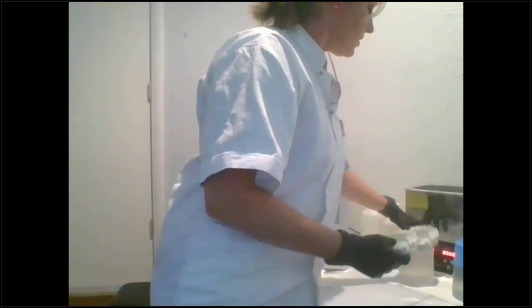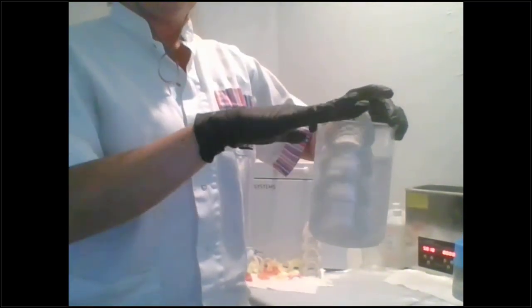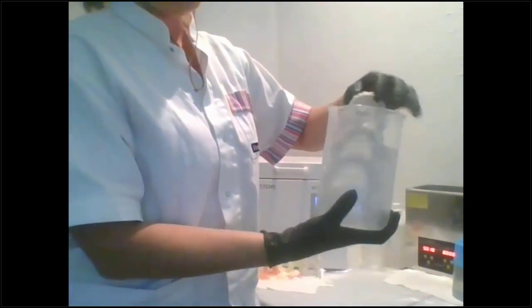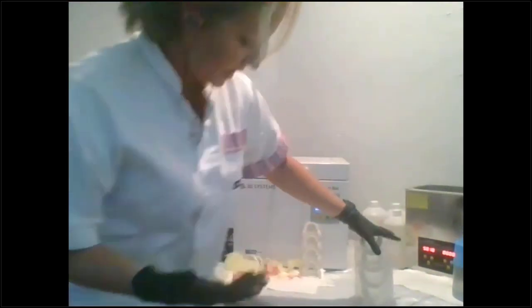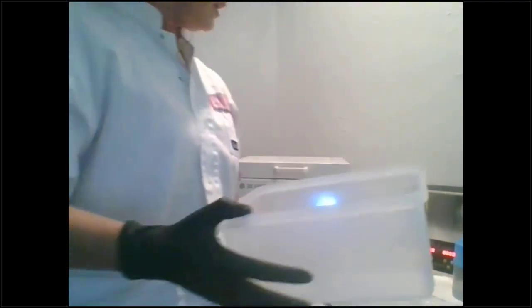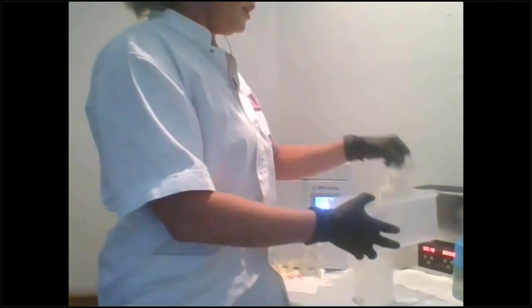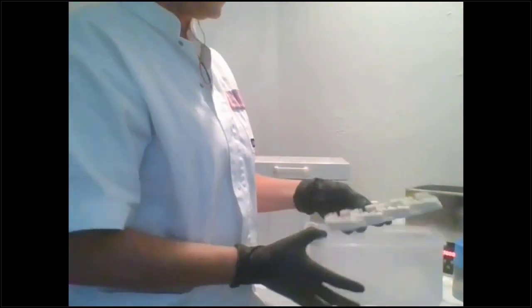So then after you get it cleaned, I'm working in my home office, so I don't have as big of an ultrasonic. So I use these 1,000 milliliter beakers, and I put the models in, and I just fill up the alcohol, and then halfway through, I'll flip them the other direction. But if you have the same ultrasonic that I have, I'll use these as well. I'll just use a Tupperware, and I'll lay my stacks in, and you can put a ton of stacks. So you could actually do 2 builds and just clean them all at the same time. Halfway through, you'll flip them and put them back in the ultrasonic. So this is when I was doing a lot of stacked printing.